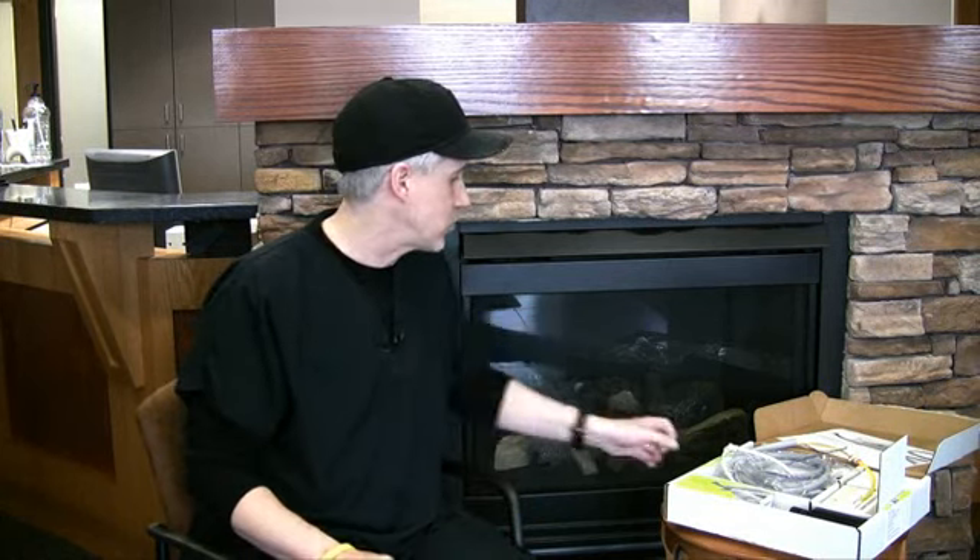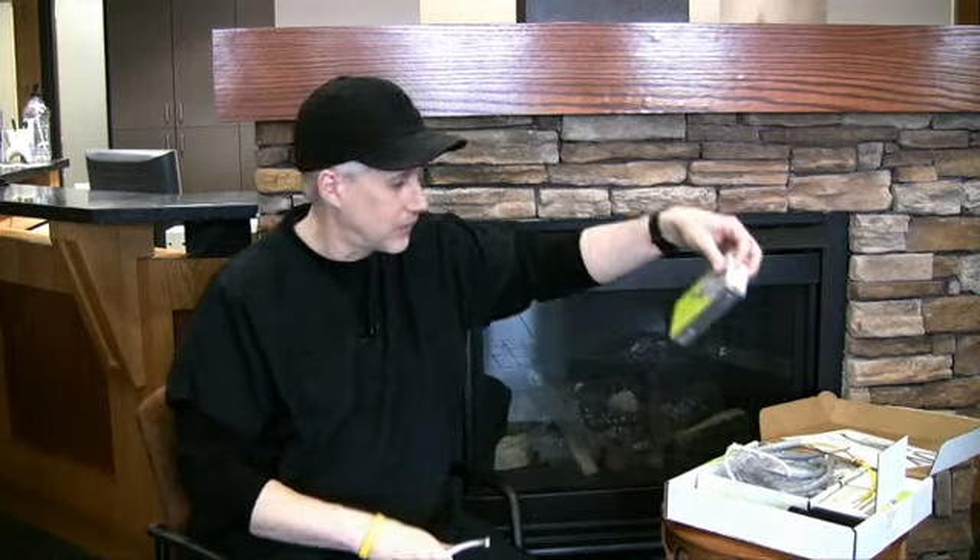This week, what I want to talk about is the Midwest Stylus ATC handpiece, and it's put some new bells and whistles into the whole idea of an air-driven handpiece. Normally in dentistry, when we think of buying a handpiece, we think of this — we order a handpiece, it comes in a box, we take it out of the box, connect it, put the burr in it, and away we go.